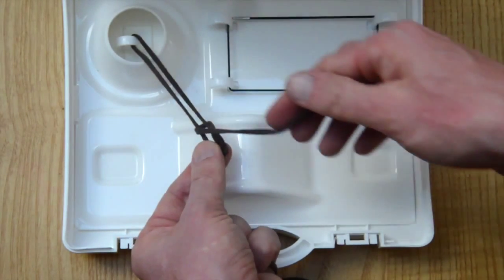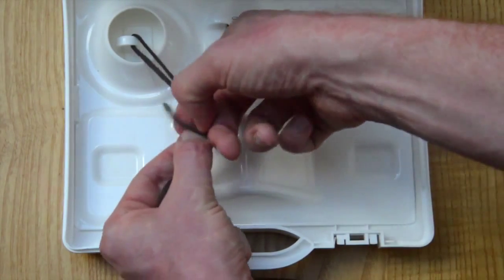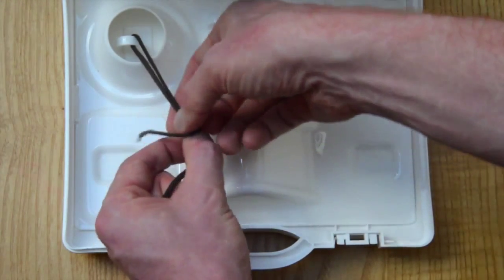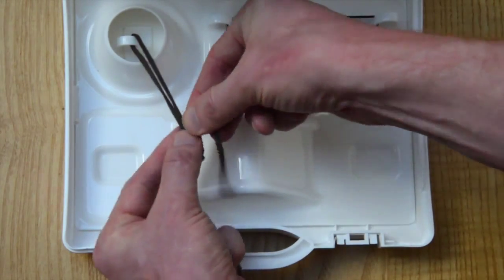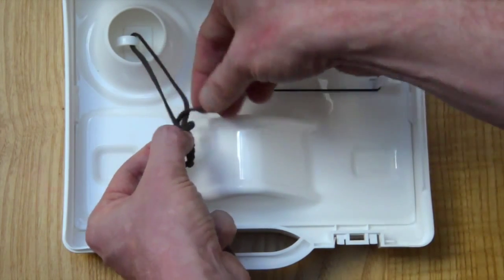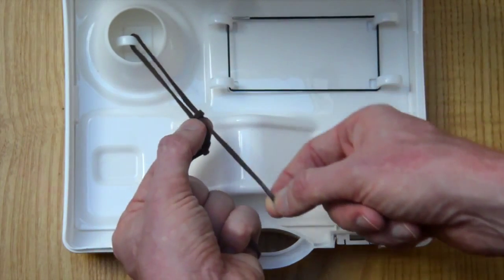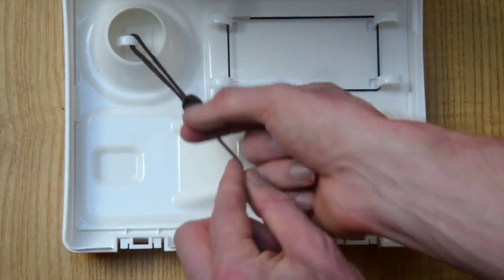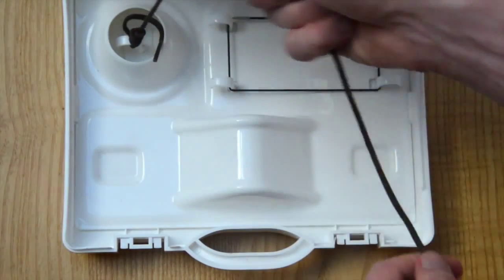Then using the thread in your right hand, wrap it round for three throws. Finish this off by throwing a final hitch. At this point, snug the knot down, and then using a knot pusher — in this case, my fingers — you can tie an extracorporeal knot.